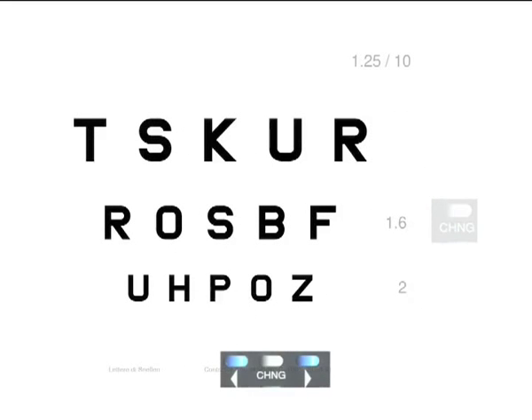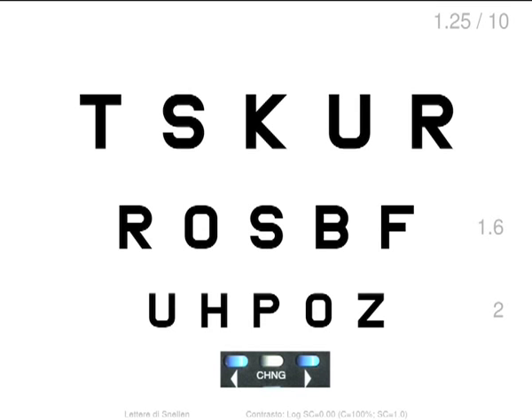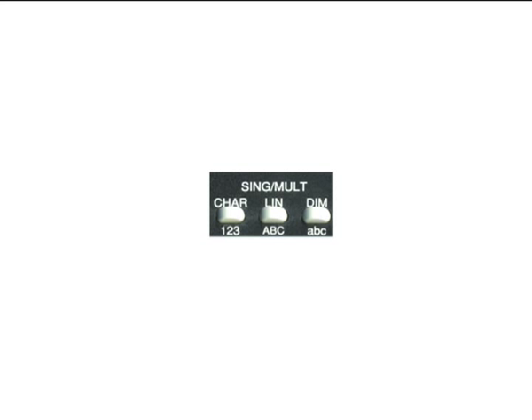The left arrow and right arrow keys allow to modify the contrast of the table displayed, according to the logarithmic scale of the sensitivity to the contrast. In order to change the display of the table, you can use the char, lin and dim keys.